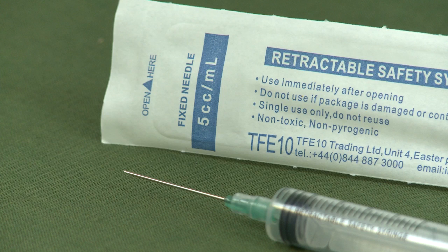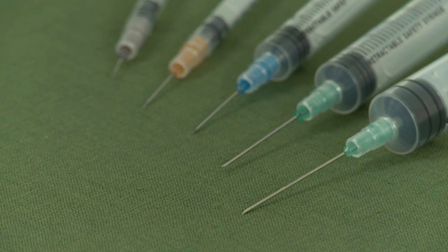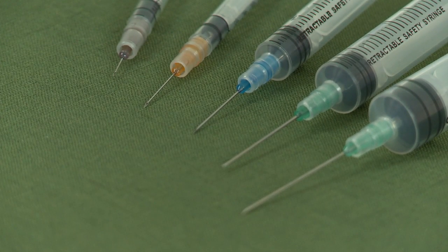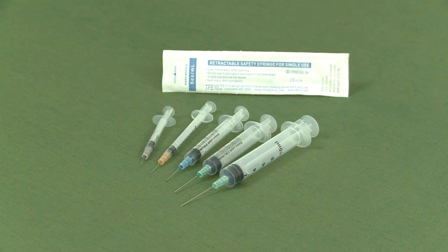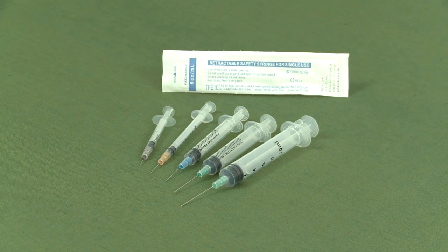Our retractable safety syringes are designed for single use and safe disposal. Available in a range of sizes from 0.5, 1, 2, 3, 5, and 10 milliliters, these syringes are very competitively priced and easy to use.